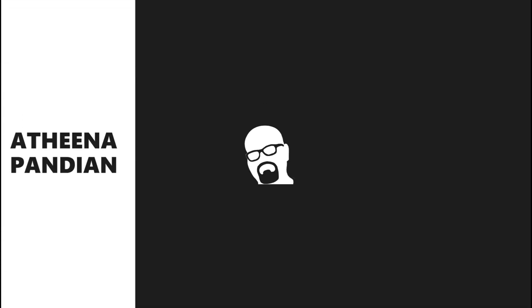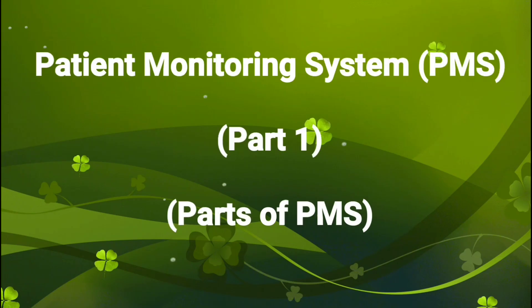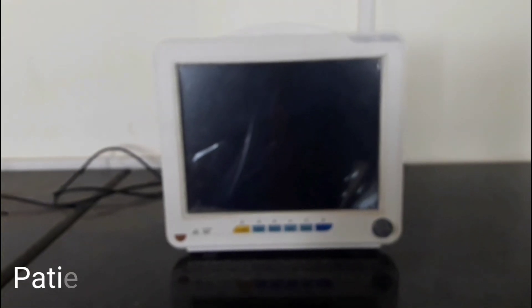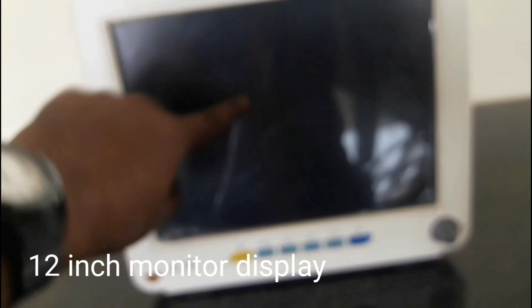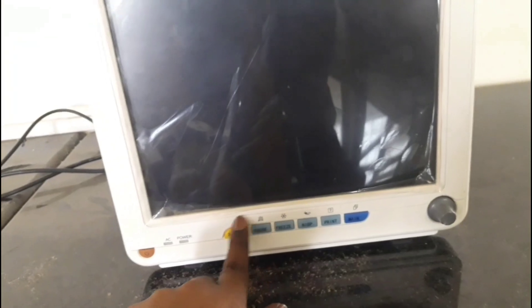This is the equipment called the patient monitoring system. Through this system we can understand the vital parameters of the human body. The monitor size is around 12 inches. On the front view, we have buttons in the bottom region — there is a power button and several buttons for settings and display.